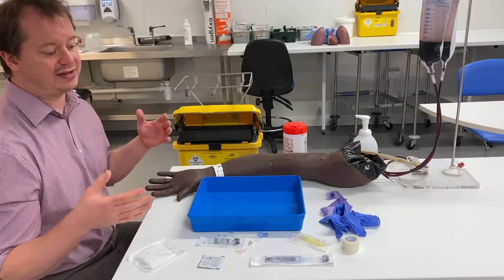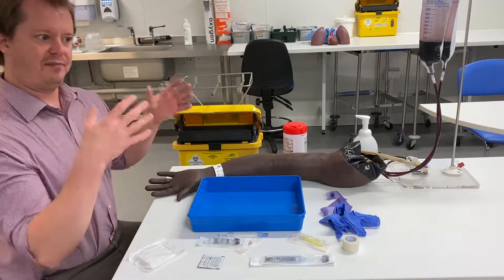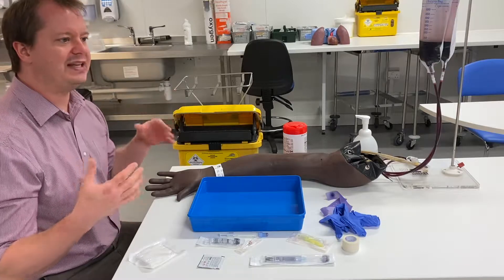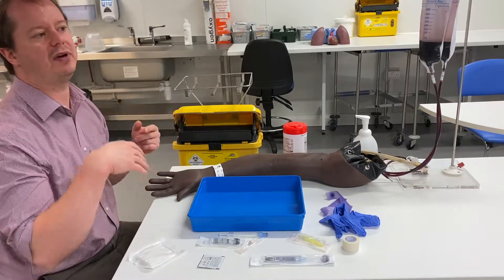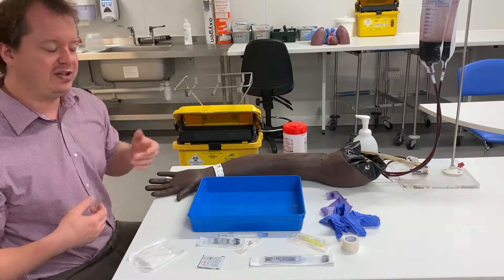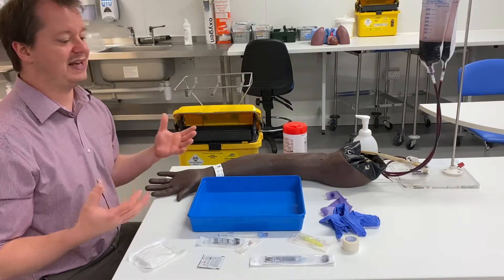You can do them as — like Tina said in her blood culture video — you can do them as part of an order set, so you might use one needle and then do some blood cultures followed by your normal standard blood tests and then followed by a VBG, or we might do it as a standalone test.